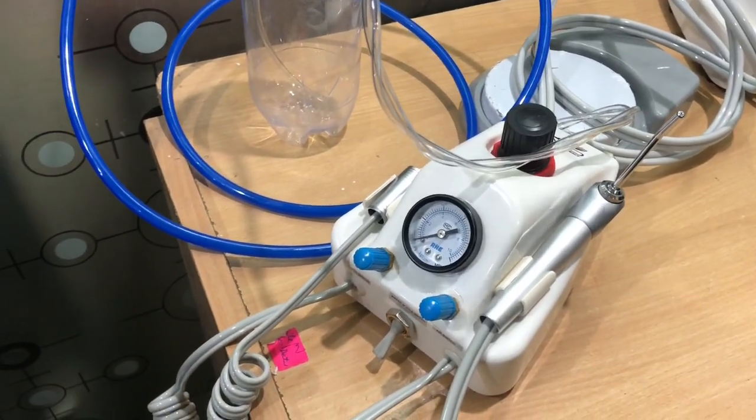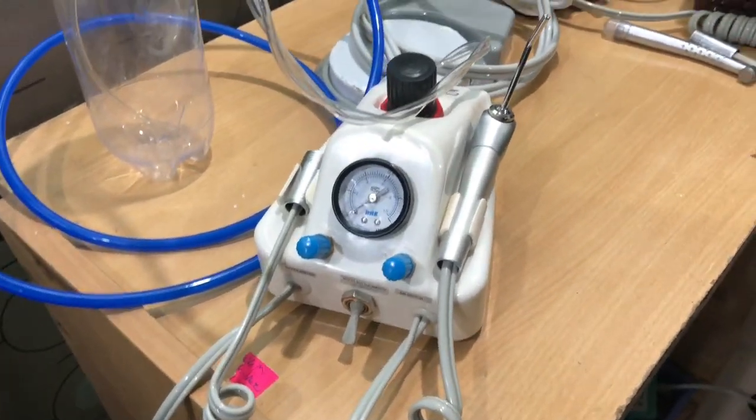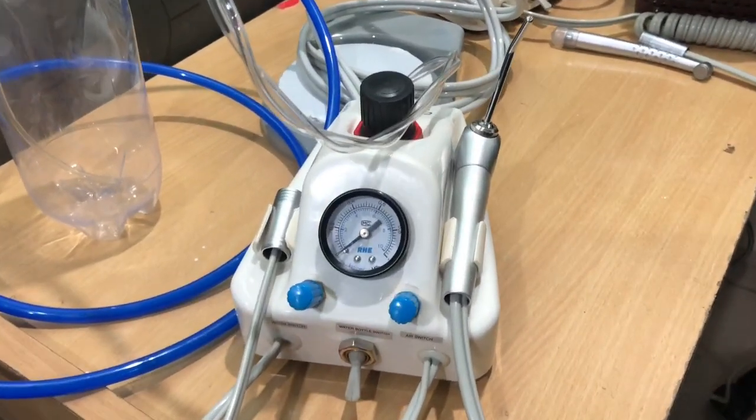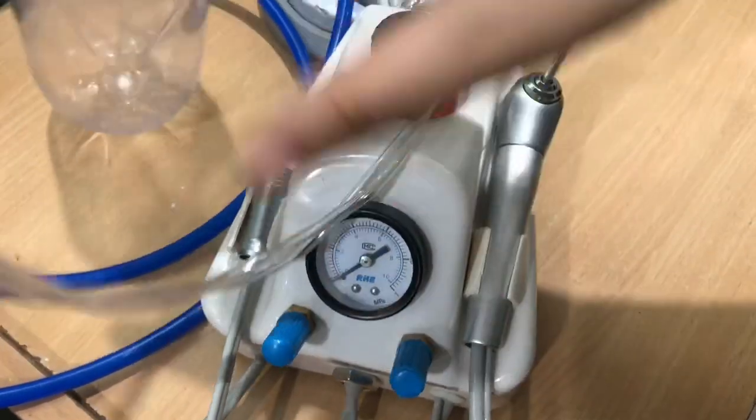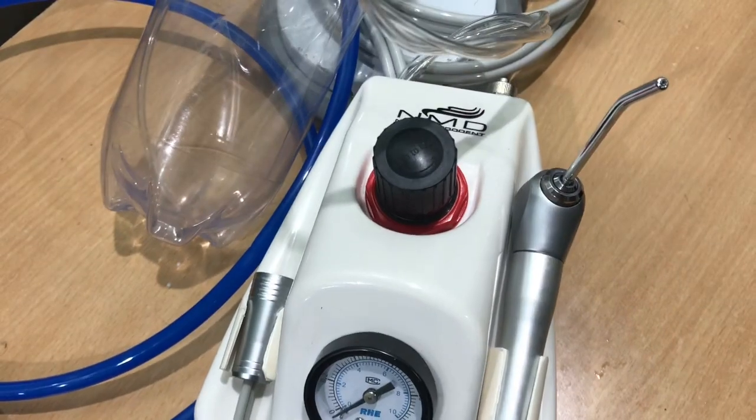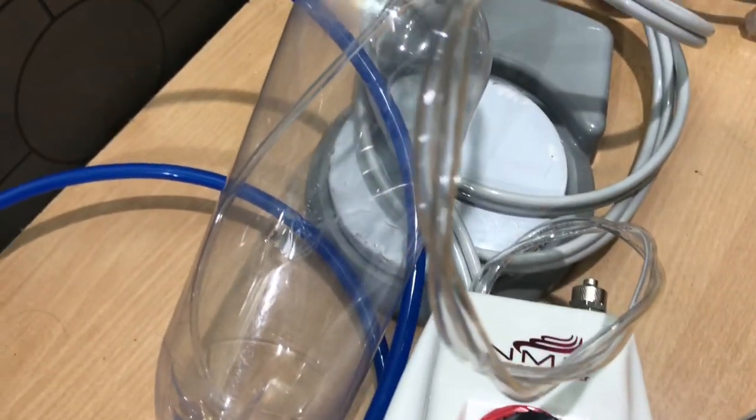Or if your patient is sitting on your dental chair and you need to do some correction works, you don't require to ask the patient to get up. You can just directly place this portable air turbine and you can just directly do it inside the chair.